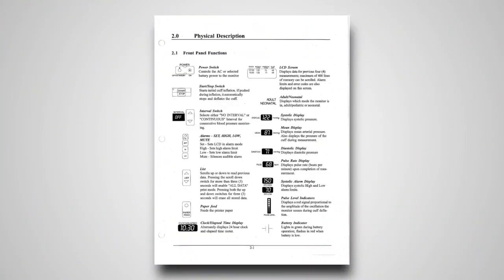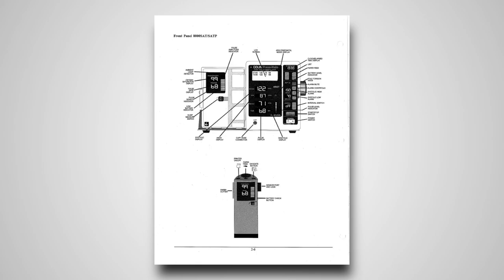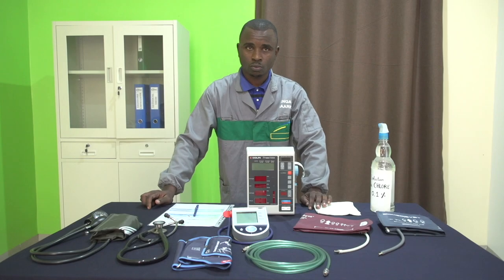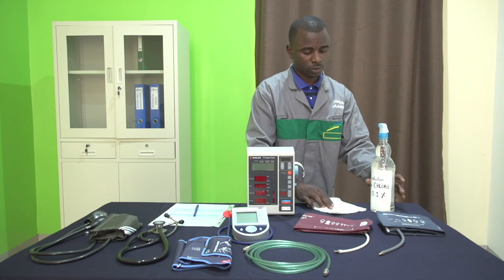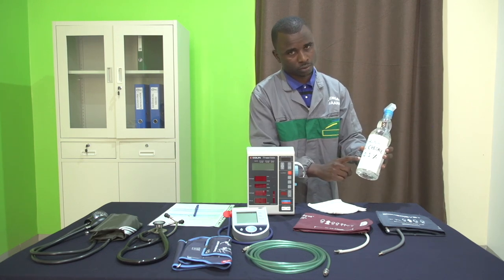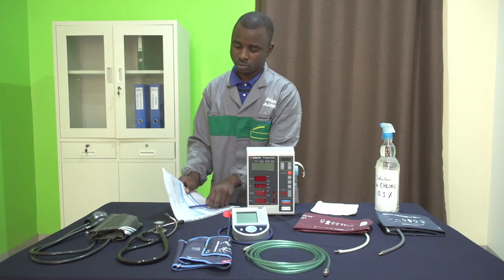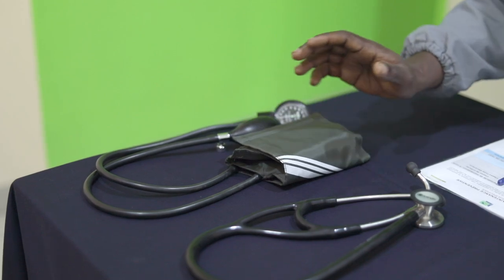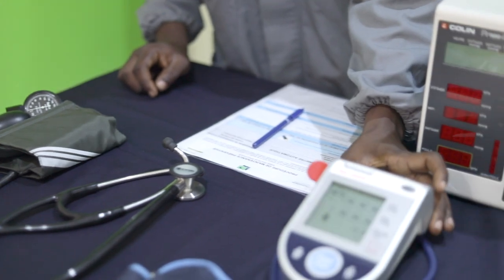Pour réaliser la maintenance préventive de cet appareil médical, il faut consulter en priorité la documentation technique de la marque et du modèle de l'appareil. Voici ce dont nous avons besoin : un chiffon, un produit de nettoyage spécifique aux dispositifs médicaux, un compte-rendu des tests vierge, un stylo, un tensiomètre manuel et stéthoscope, ou un autre tensiomètre automatique avec un module PNI.